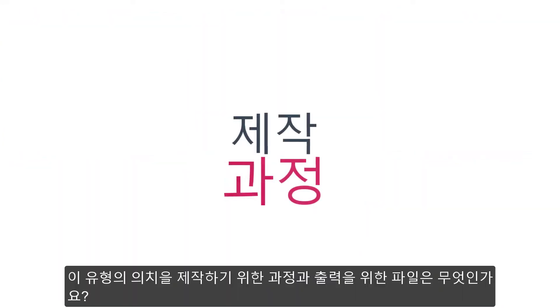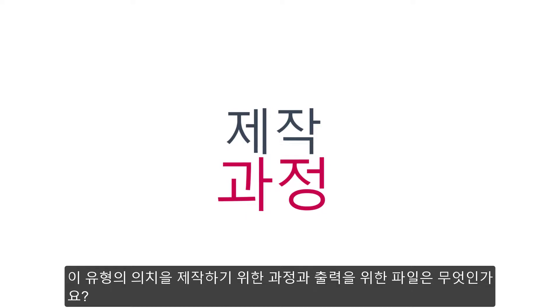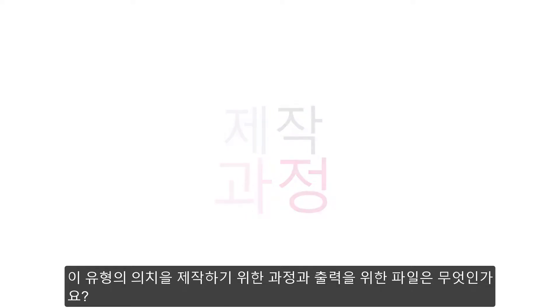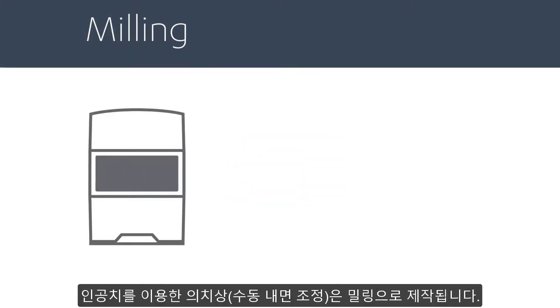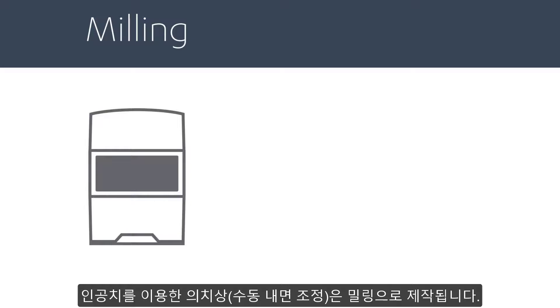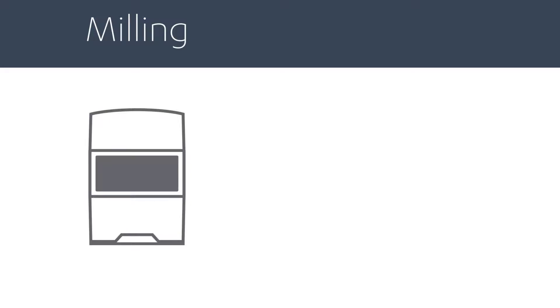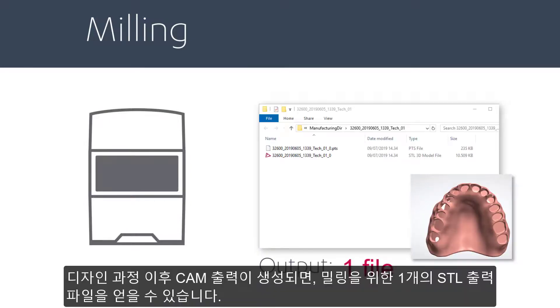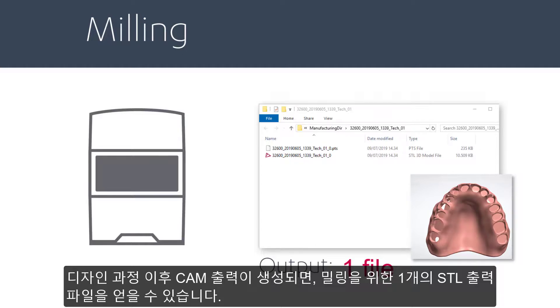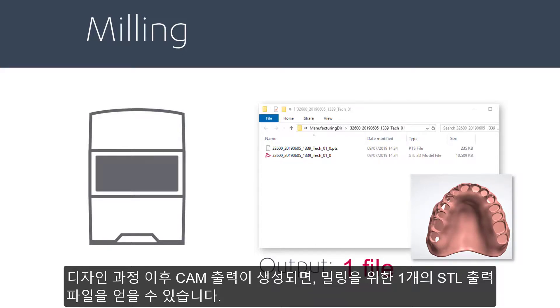What kind of production process can I use for this type of denture, and what is the output? To produce the base with artificial teeth, manual reduction, you will mill it. After the designing process and generating the CAM output, you'll get one STL file as the output.